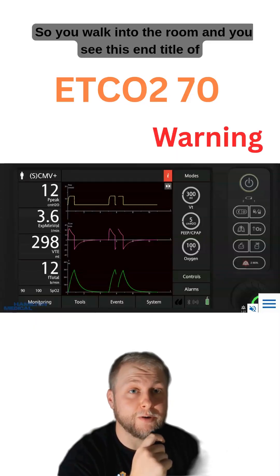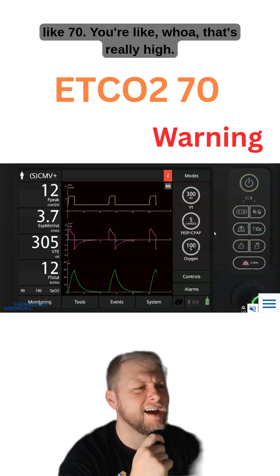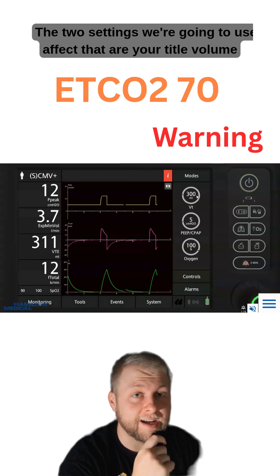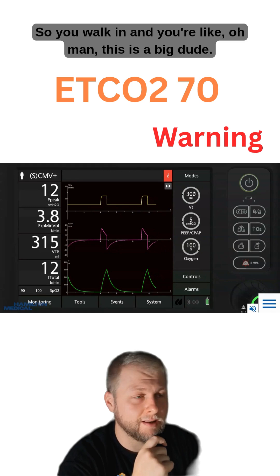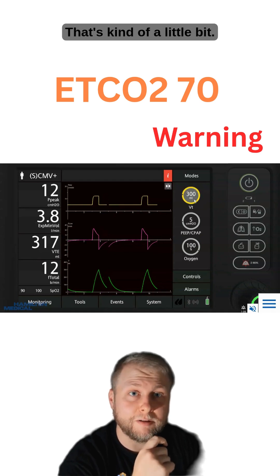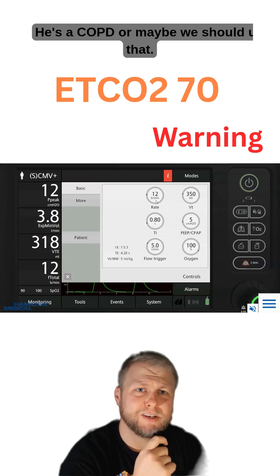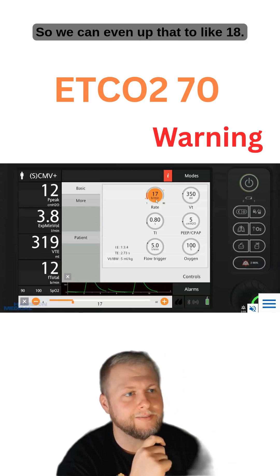So you walk into the room and you see an end-tidal of like 70 — that's really high and you need to get some of that off. The two settings we're going to use to affect that are your tidal volume, or VT, and your respiratory rate. For example, if this is a big patient only breathing 300 mils per breath, we'll go ahead and bump that up to 350. Then you look under controls and see the rate's only 12 — maybe for a COPD patient — but we could up that to 18 to help breathe off that CO2. And vice versa, if CO2 was really low, we'd want to slow down those two settings.